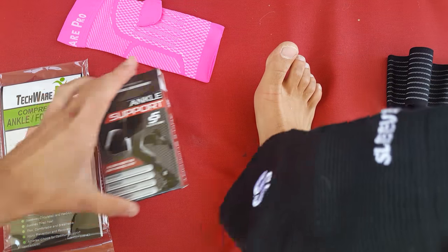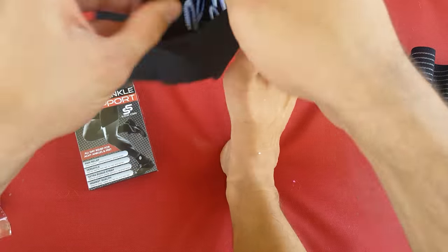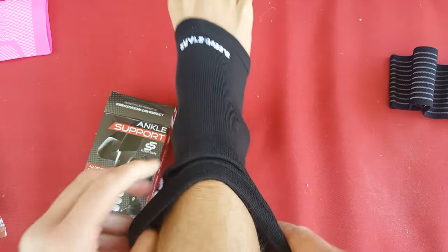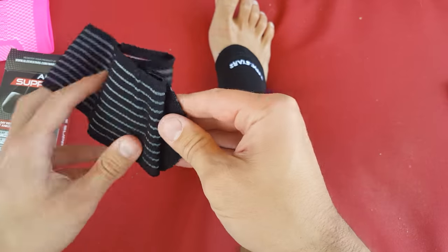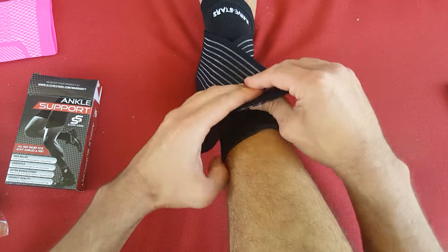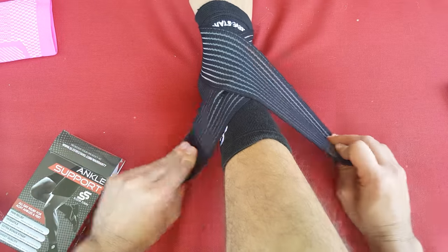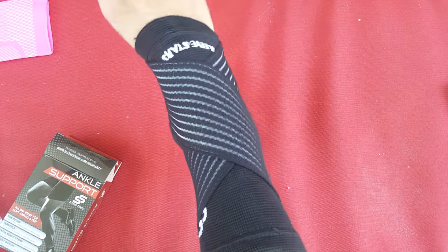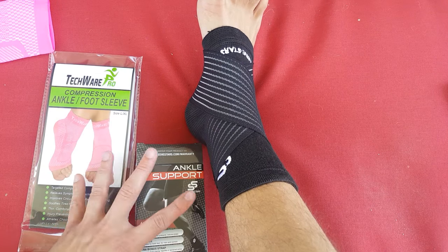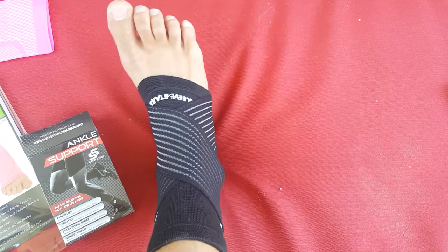The SS Sleeve Star is a similar sleeve that goes on, but with this one you get a little bit of extra support from the bottom. It locks in the back, so this gives you a little bit more support compared to the simple Techwear sleeve, but it's still not as supportive as the middle-line lace-up braces. So any of these are going to be great, and that's how I would think about picking out ankle braces.